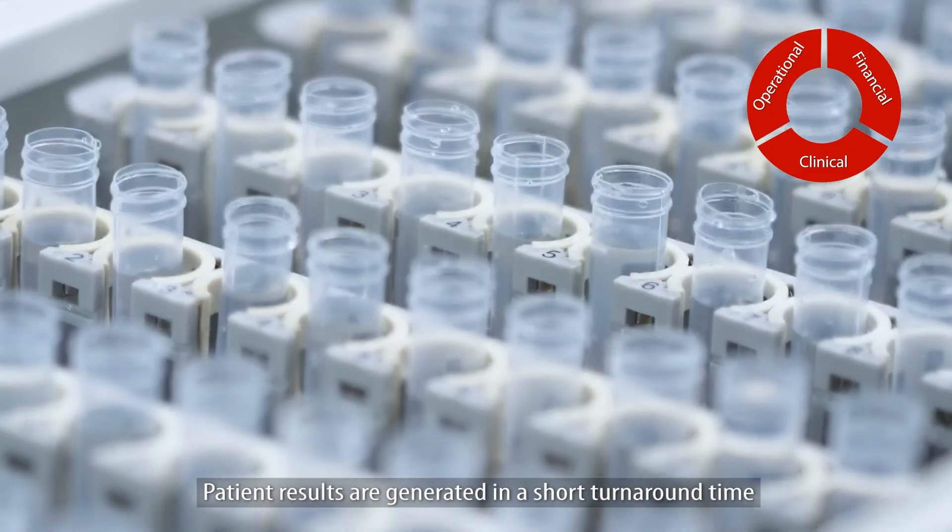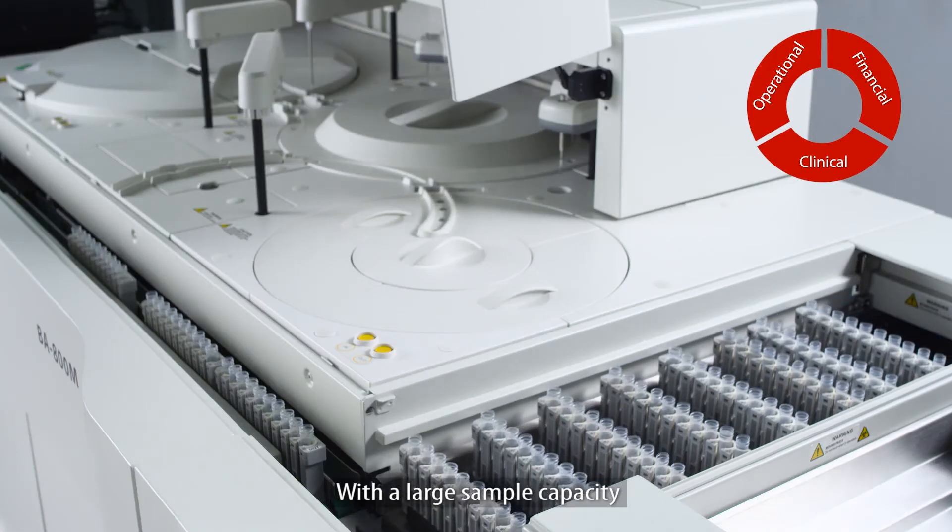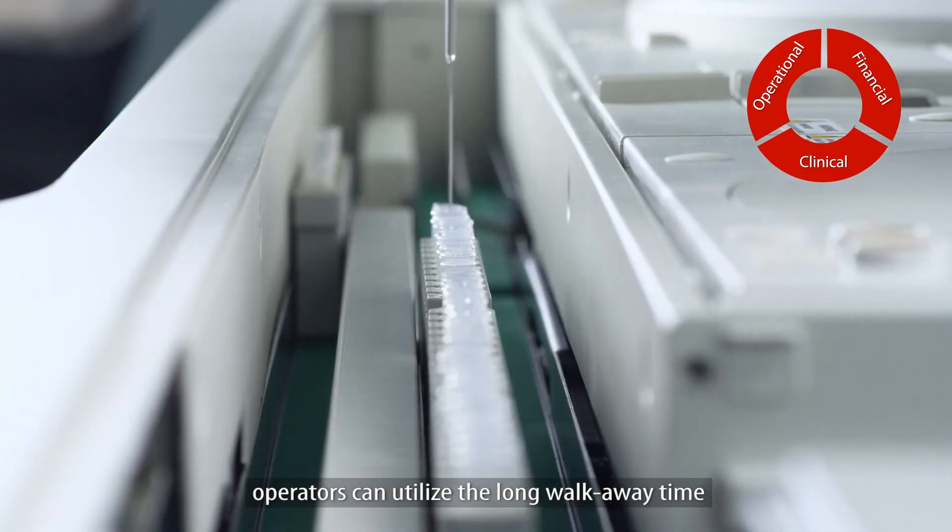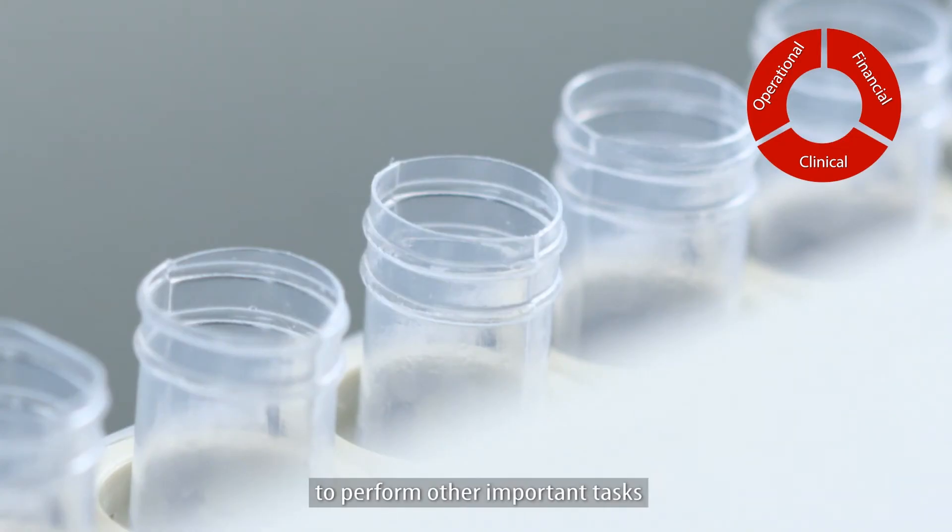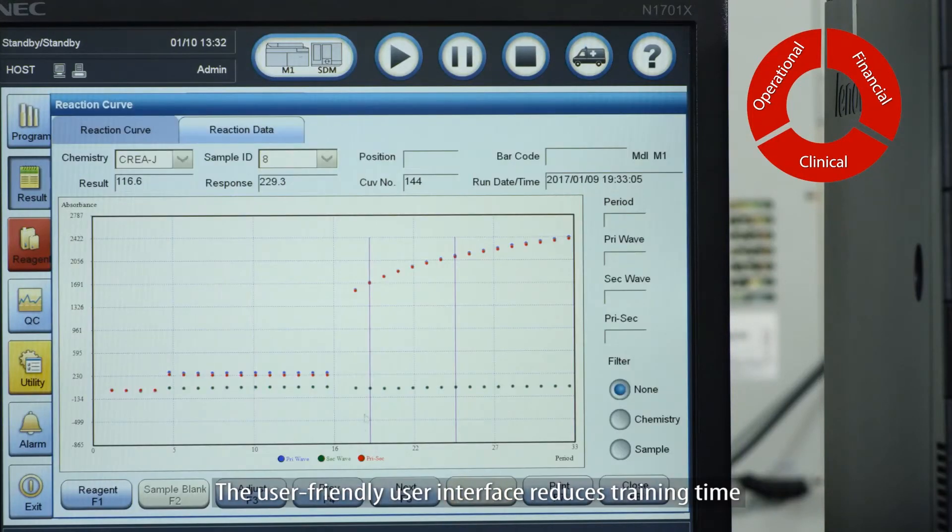Patient results are generated in a short turnaround time. With a large sample capacity, operators can utilize the long walk-away time to perform other important tasks. The user-friendly user interface reduces training time.